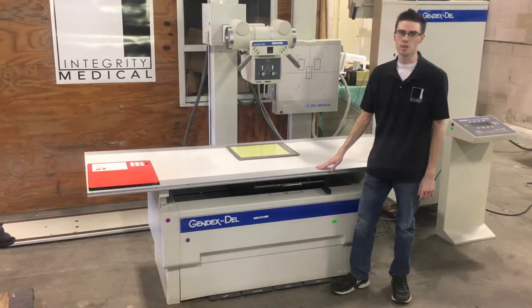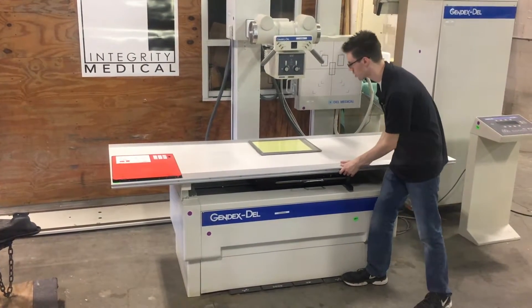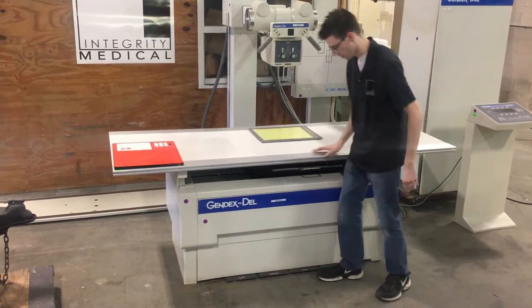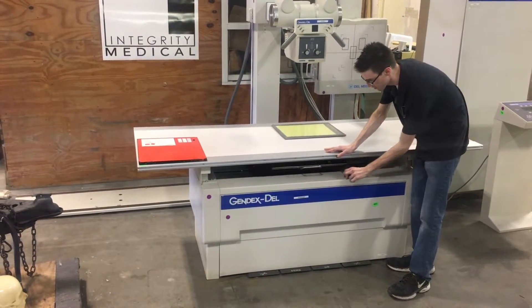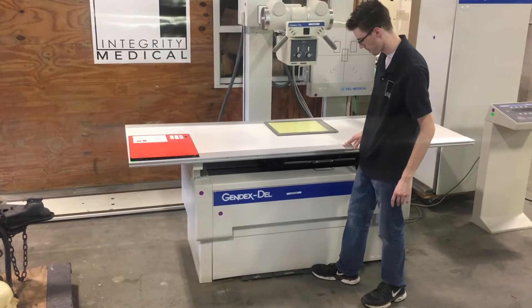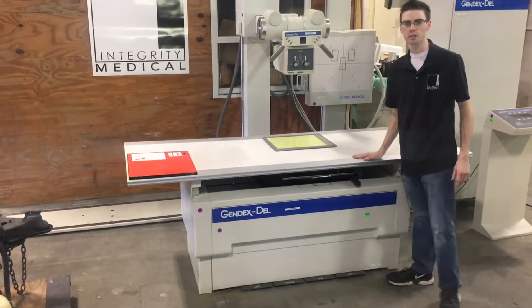The table is a four-way float top elevating table. By pressing the paddles over here you can release the locks at the top. You can go in the transverse direction and you can go longitudinal. The bucky also has a lock by pressing this button. And you can also make it go up and you can make it go down. And that is how the table works.